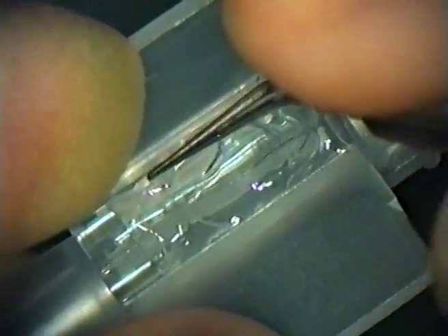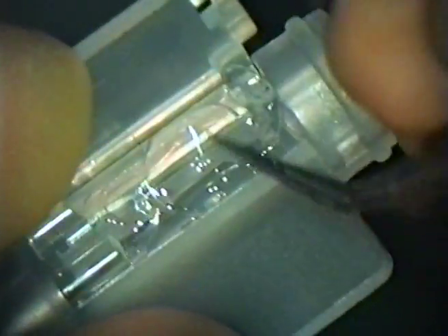Finally, the opposite edge of the optic is positioned, and care is taken to ensure that the haptics are completely within the loading bay.